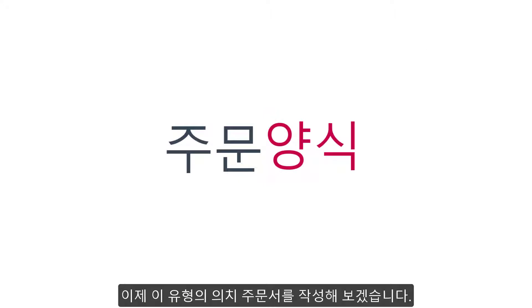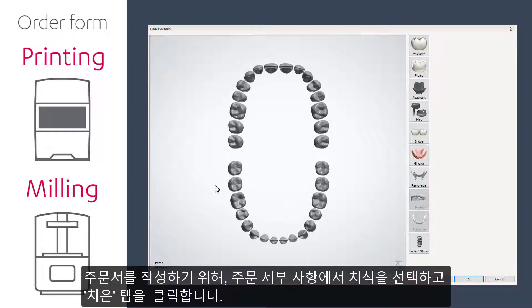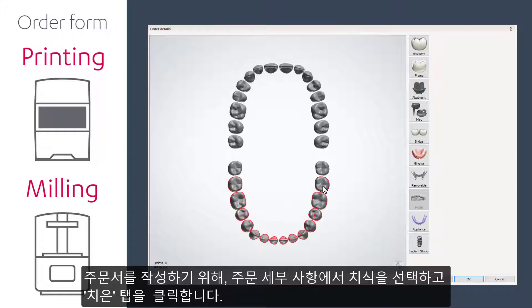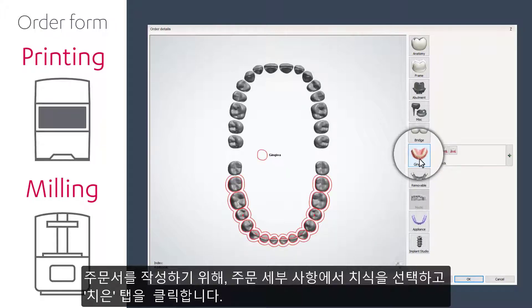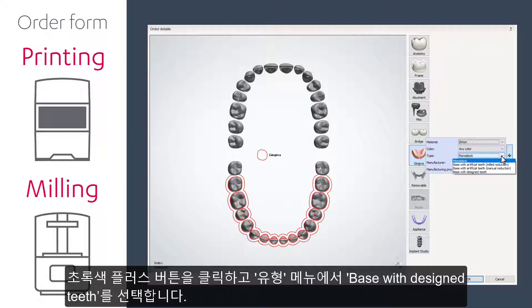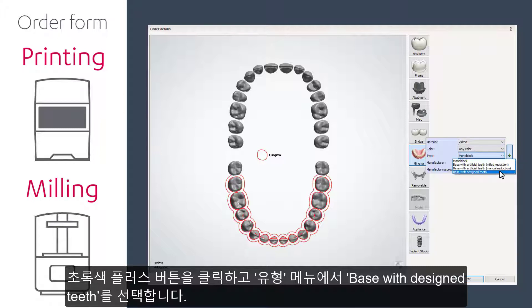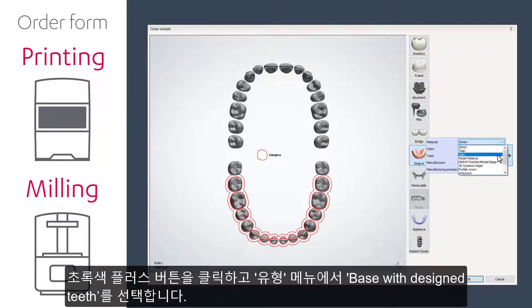How would you create an order for this type of denture? When creating an order form, choose the teeth in the order details, then select the Gingiva tab. Next, hover over the green plus, and from the type menu choose Base with Design Teeth.